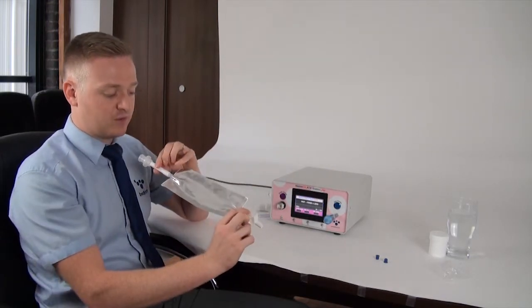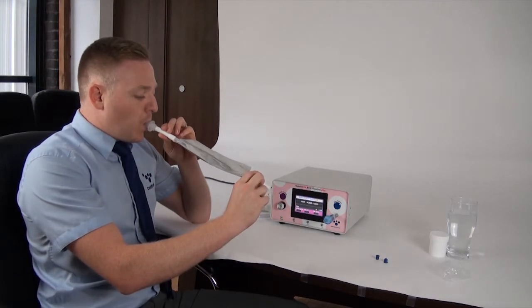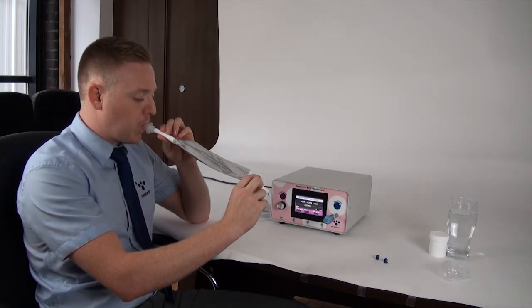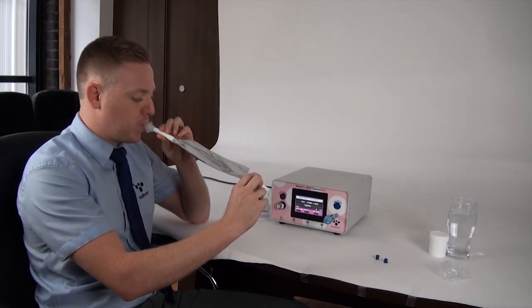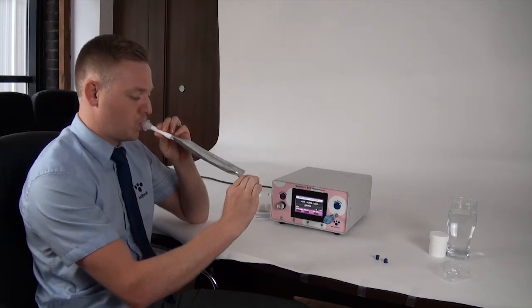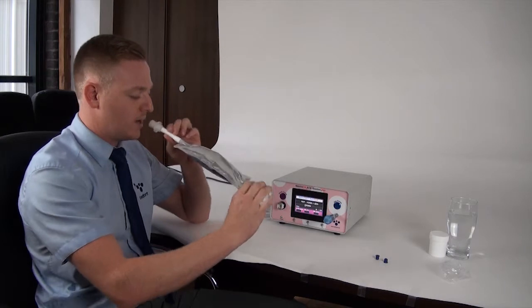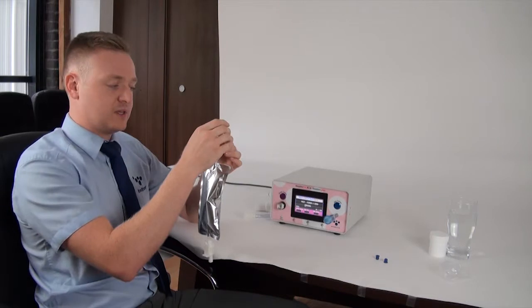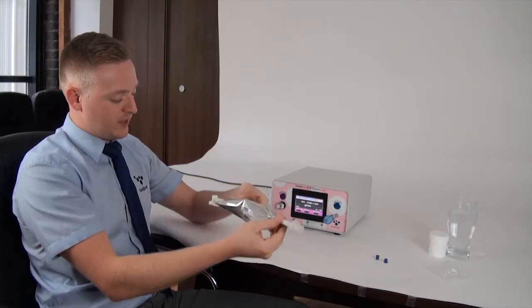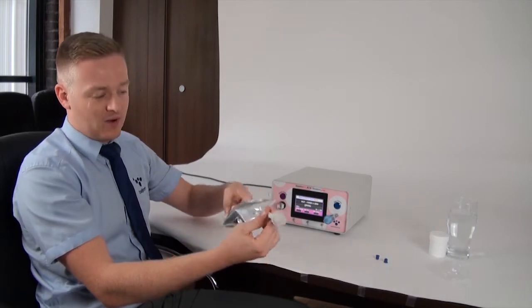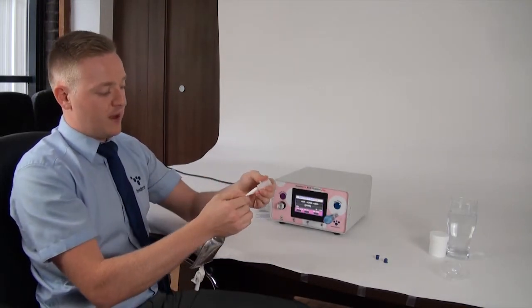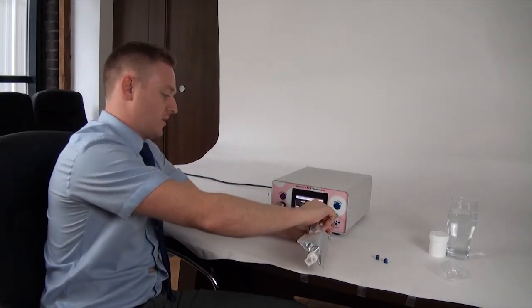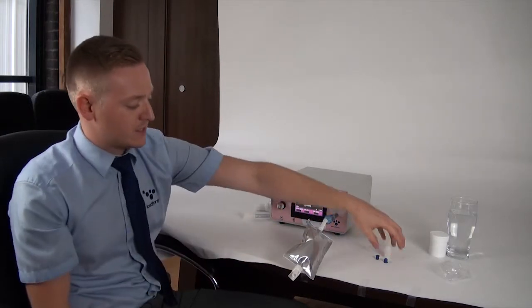So I'm now going to show you how to fill this bag up. So the sample's now held in the bag. Close the clip and the mouthpiece stopped any air from coming back out. So straight after you've done the test, you can do it either way round really. You can either take the mouthpiece off the end here and put it onto the filter.